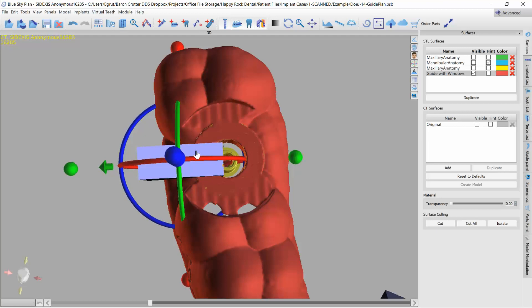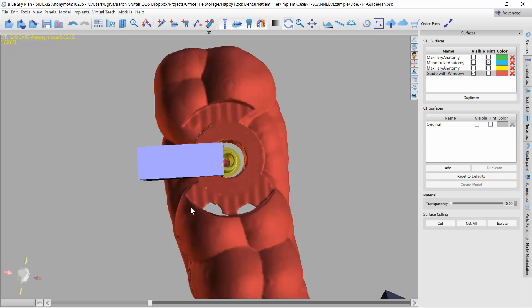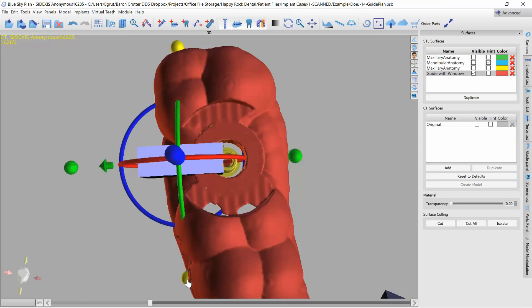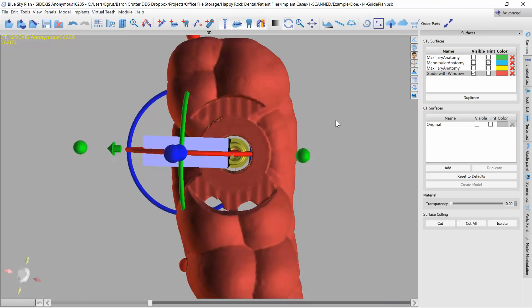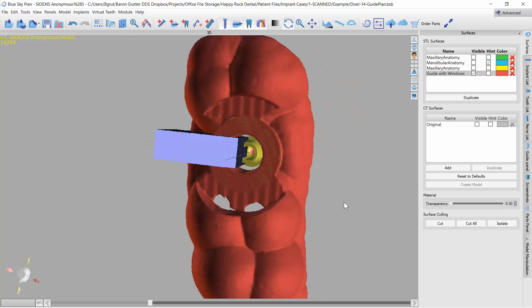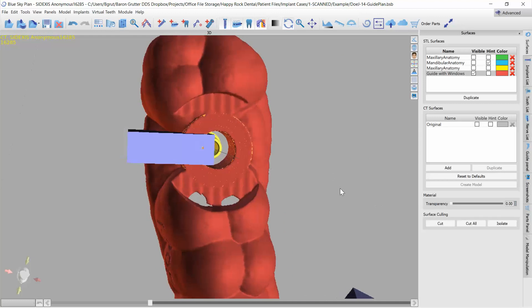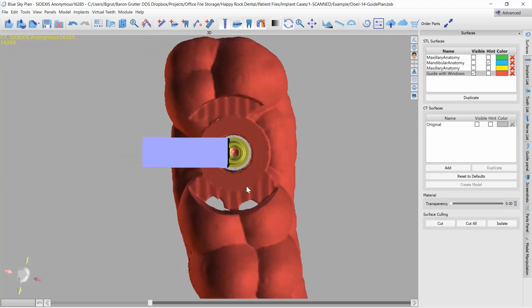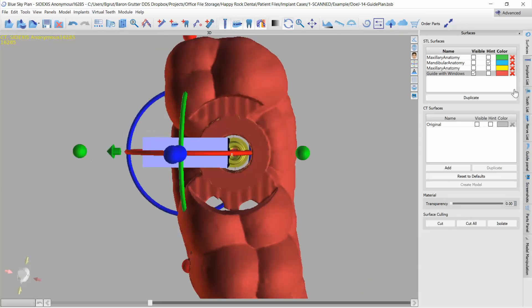Okay, so now I know that those are lined up. I can go ahead and turn my guide back on and I can position this in such a manner that it becomes parallel to this. Now I don't want it so big, let's zoom in here so you can see a little bit better what I'm doing here.